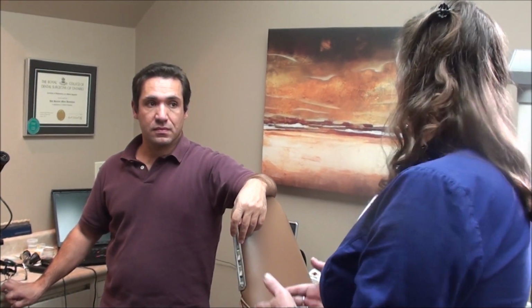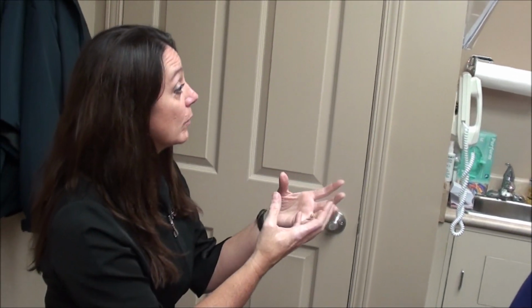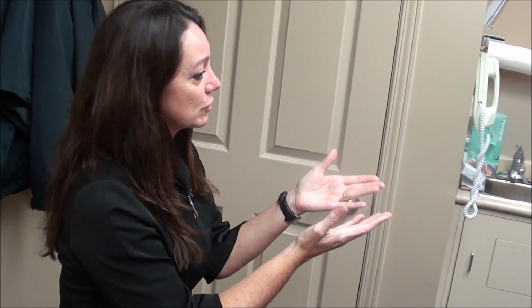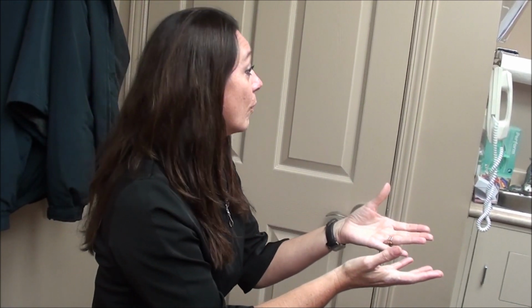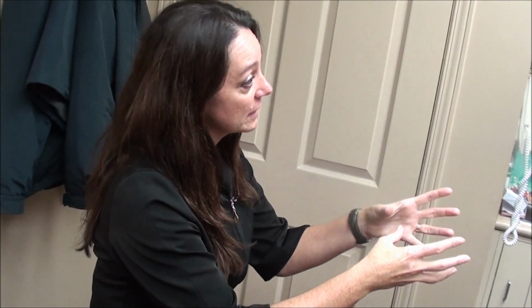It's not even about cleaning teeth any longer. It's about health. People realize what white blood cells do, right? They know red blood cells, they know white blood cells, and we know that white blood cells fight infection. So all of a sudden when you're looking under the microscope at your slide and there's white blood cells everywhere, we don't even have to look in your mouth to know there's infection or inflammation going on in there, because your body is telling us there's white blood cells all over here, that there's an infection that it's trying to fight.